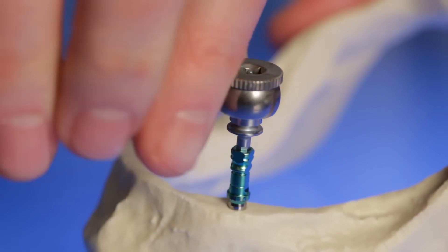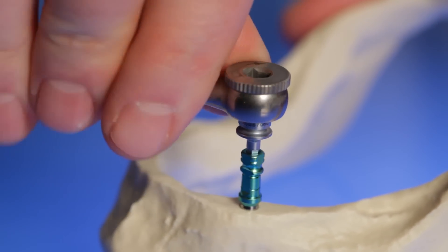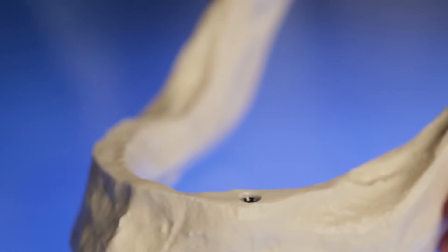When you combine depth control with accurate measurements from a CT scan, you have a nice, safe protocol that makes for sweat-free implant placement.